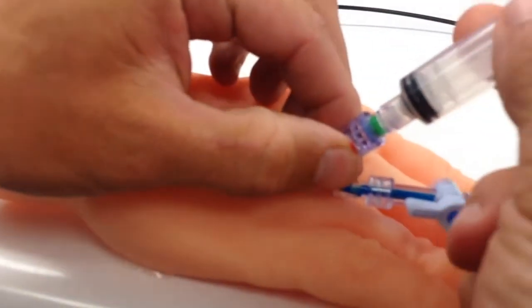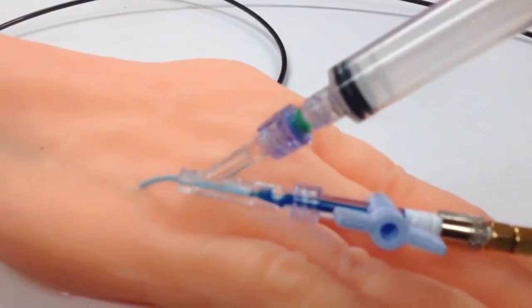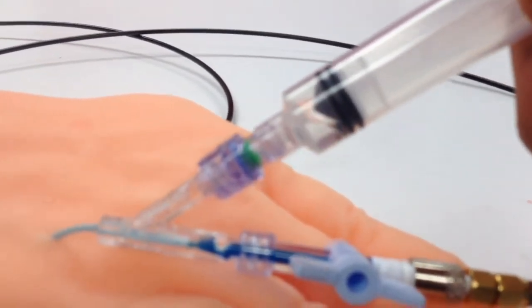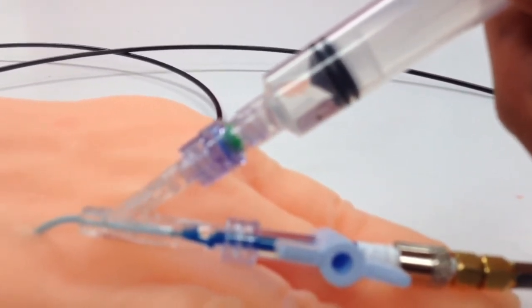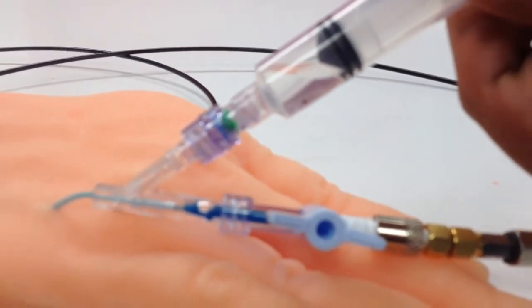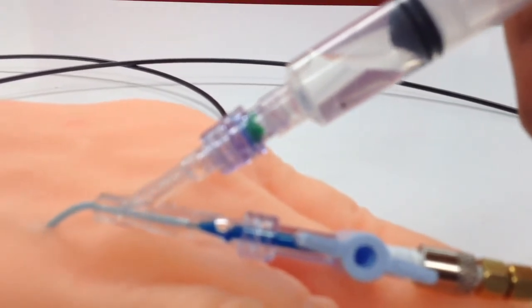In this bench test, we demonstrate the BVAD's ability to infuse fluids while simultaneously extracting raw uncontaminated blood draws from the same venous access site. You can see that the piston syringe is filling with the clear fluid, representing the raw uncontaminated blood, while the primary lumen is still infusing the blue fluid into the venous system.